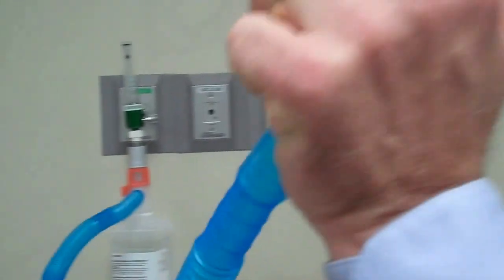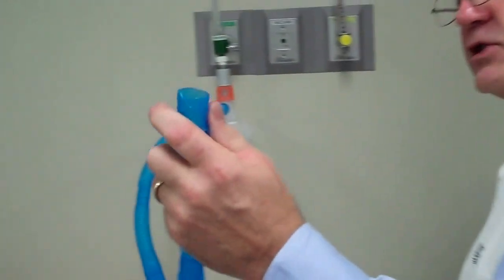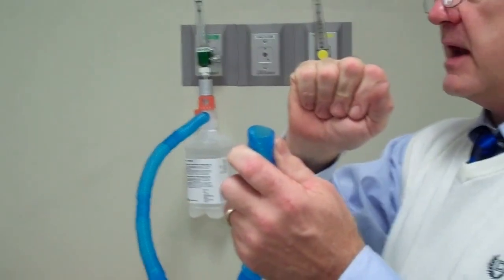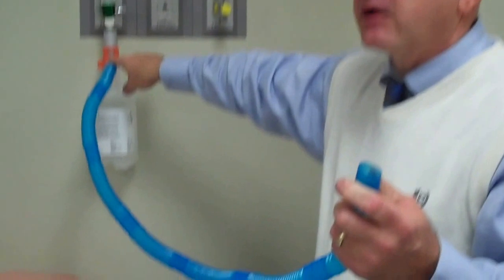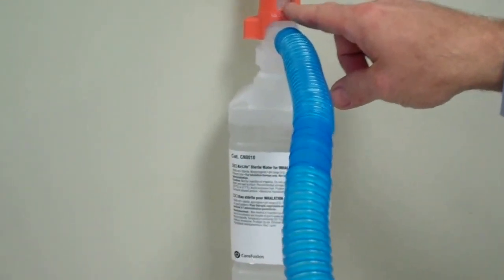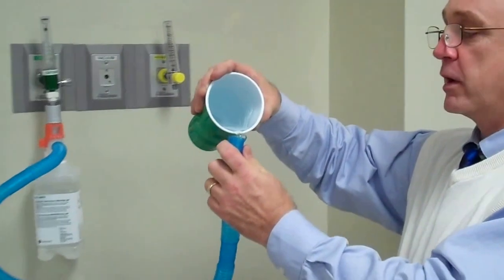Now I want to show you what happened. When we poured the water in, we saw that the flow decreased. We already know that it affected the FiO2 where the patient got boluses of higher FiO2 than they should have. But I want you to focus in on the air entrainment port on the nebulizer when I add the water. Watch the back pressure, because it's actually going to spit water out. So let's back up first and I'm going to pour some water in.